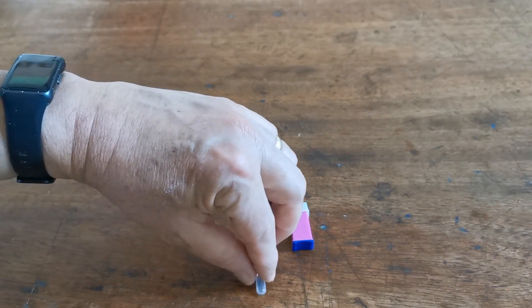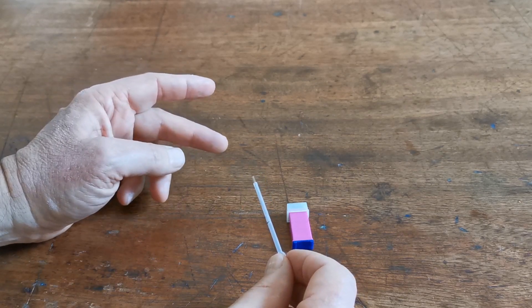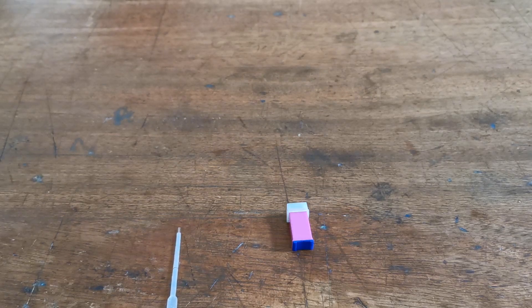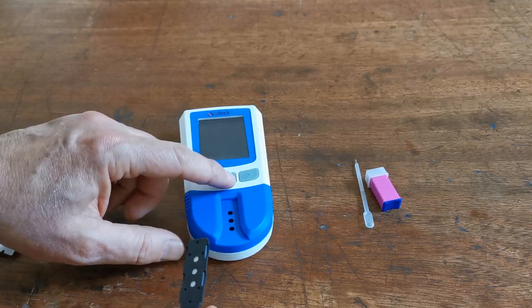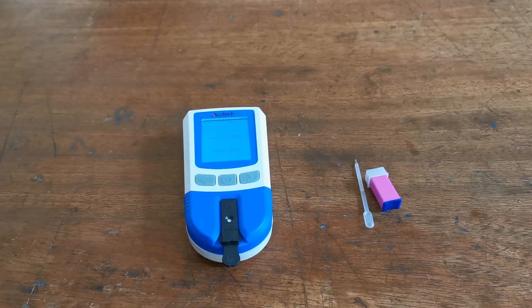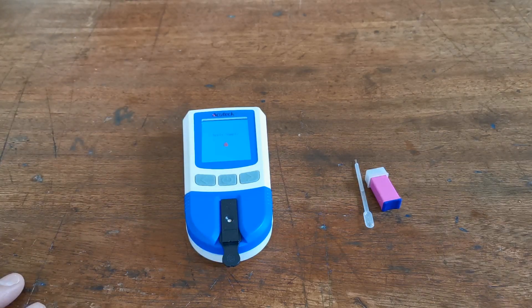Prepare the meter ready to take the sample. We'll show you the correct lancing technique with the safety lancets and how to use the pipettes which, with the black line, will naturally fill with your blood sample once correctly aligned, giving the exact correct volume of blood for the test device to produce an accurate measurement. When you are happy with capillary perfusion and ready to sample, remove the test device from its protective foil, press the power button on the meter and insert a test device for the matching code chip. The device will display 'preparing' and then a blood sample icon will flash, indicating it is ready to take the blood sample.